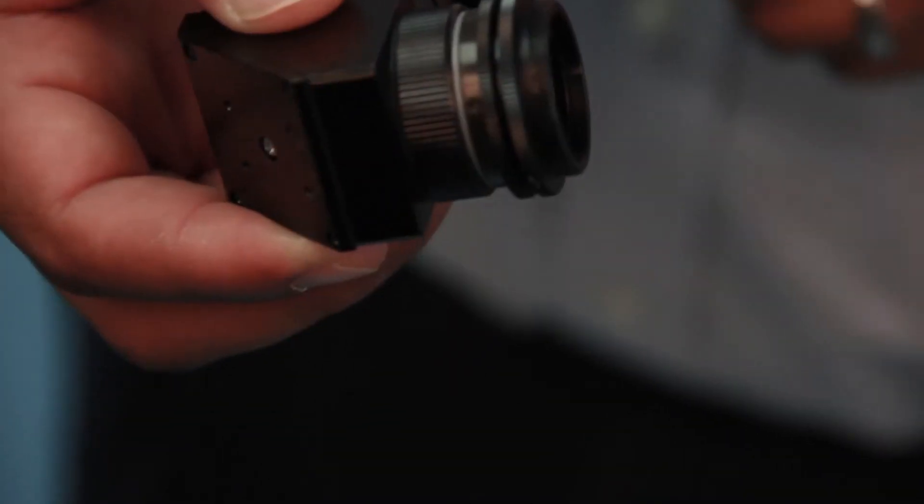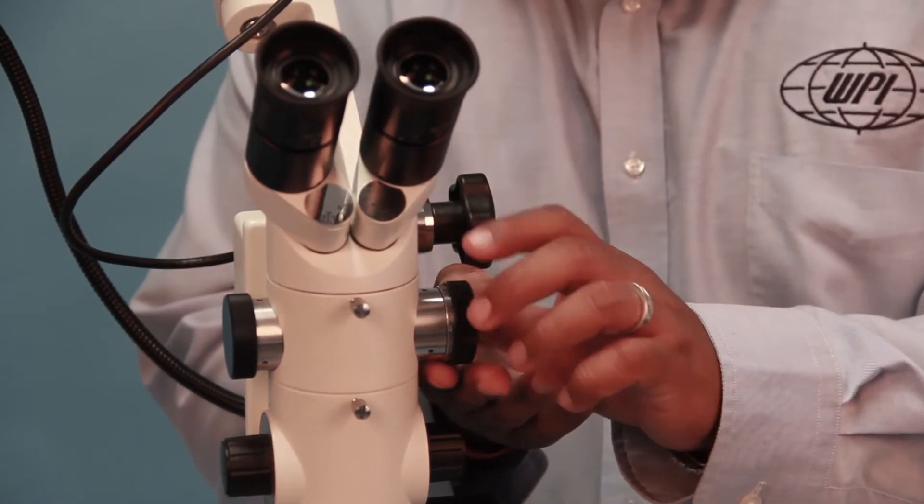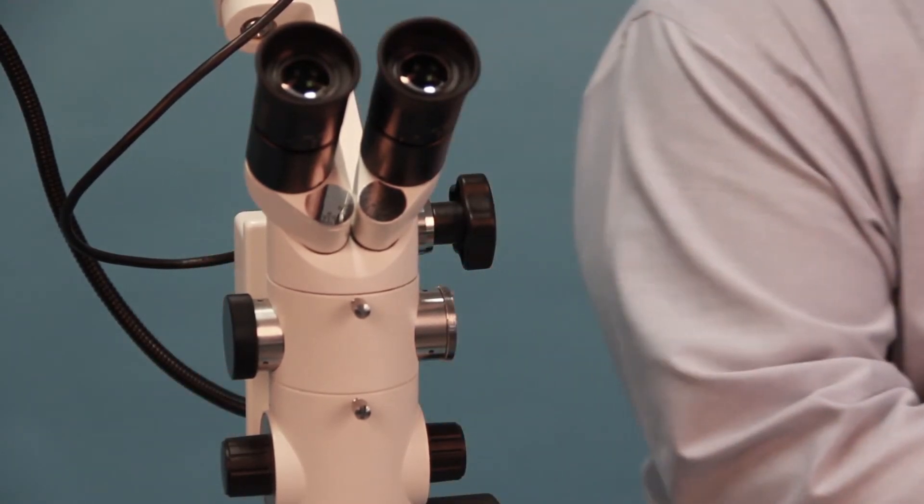Remove the dustproof cover from the left or right side of the beam splitter.